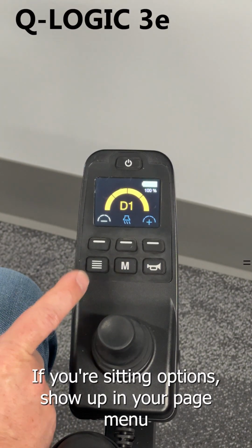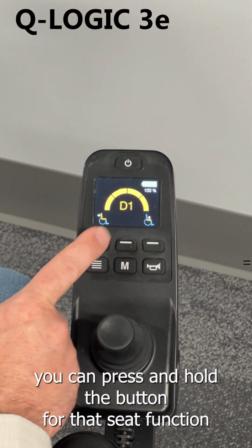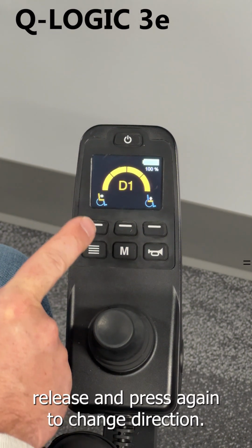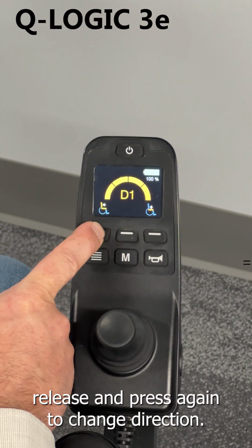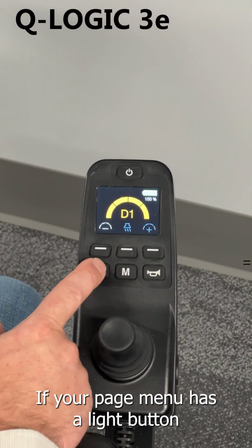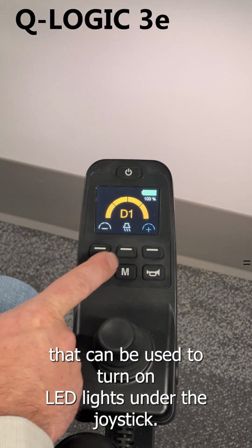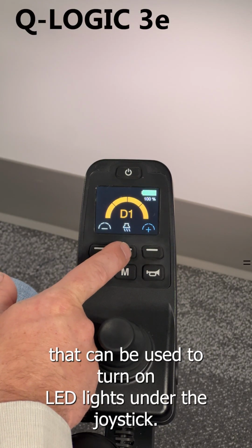If your seating options show up in your page menu, you can press and hold the button for that seat function. Release and press again to change direction. If your page menu has a light button, that can be used to turn on LED lights under the joystick.